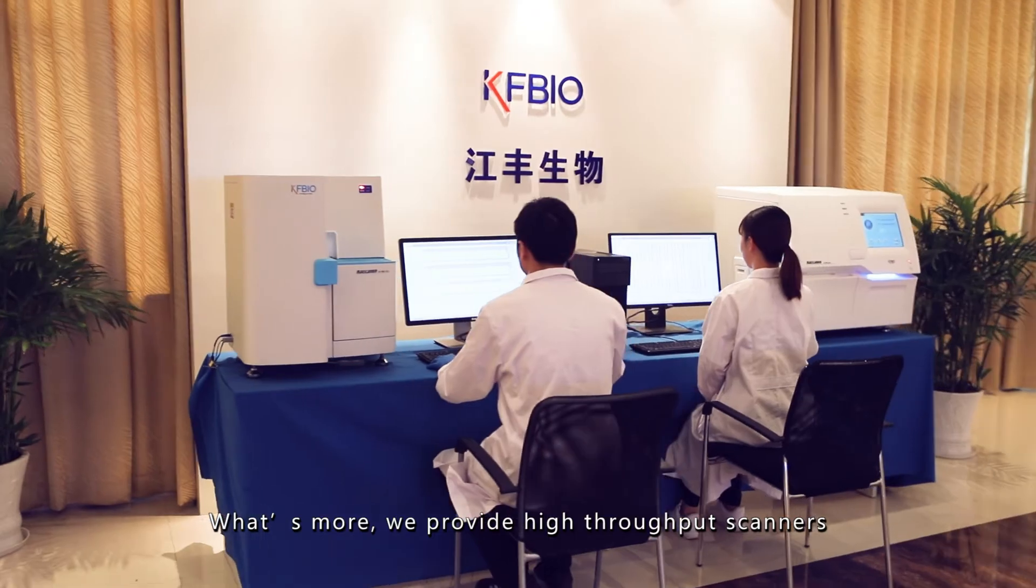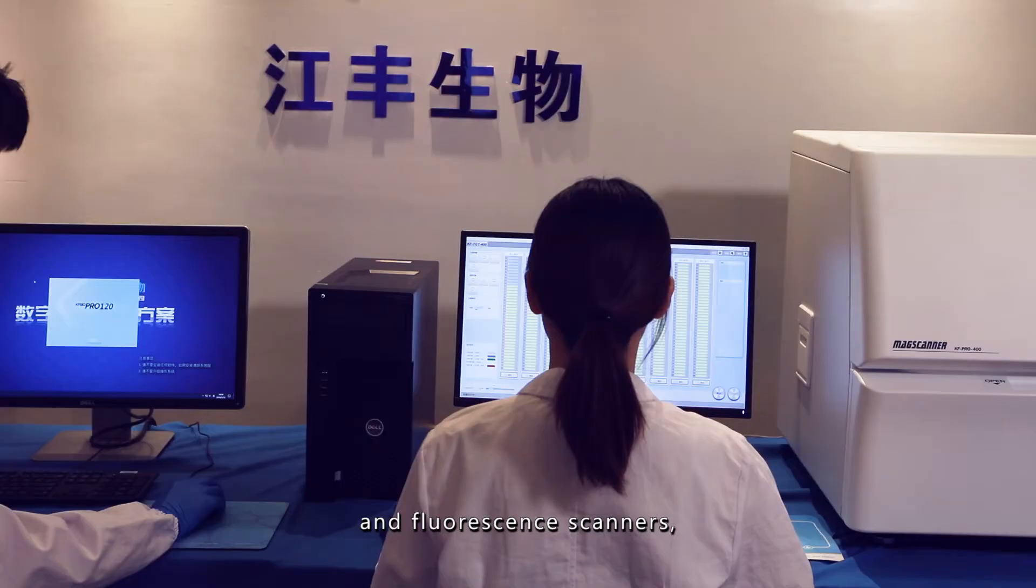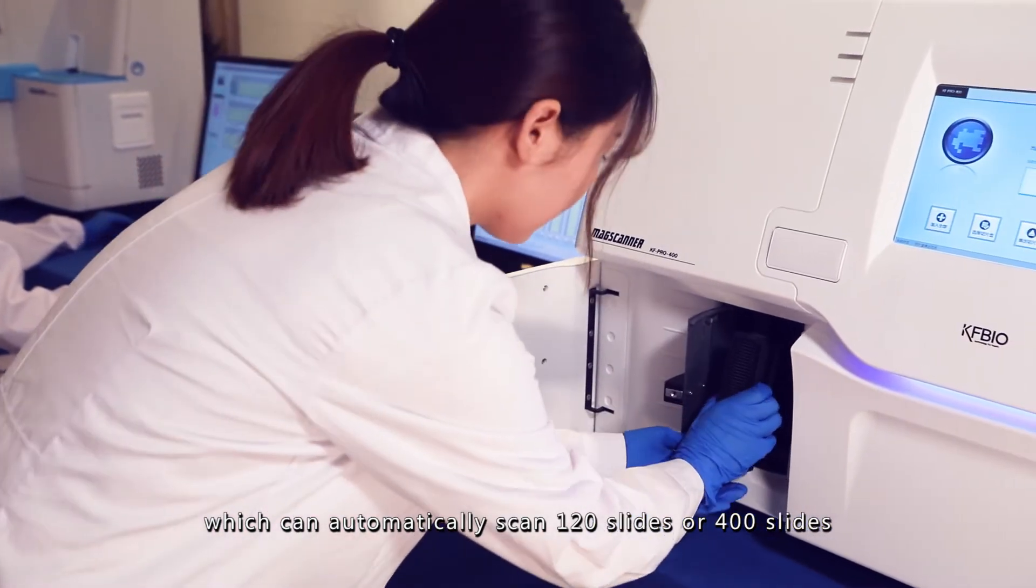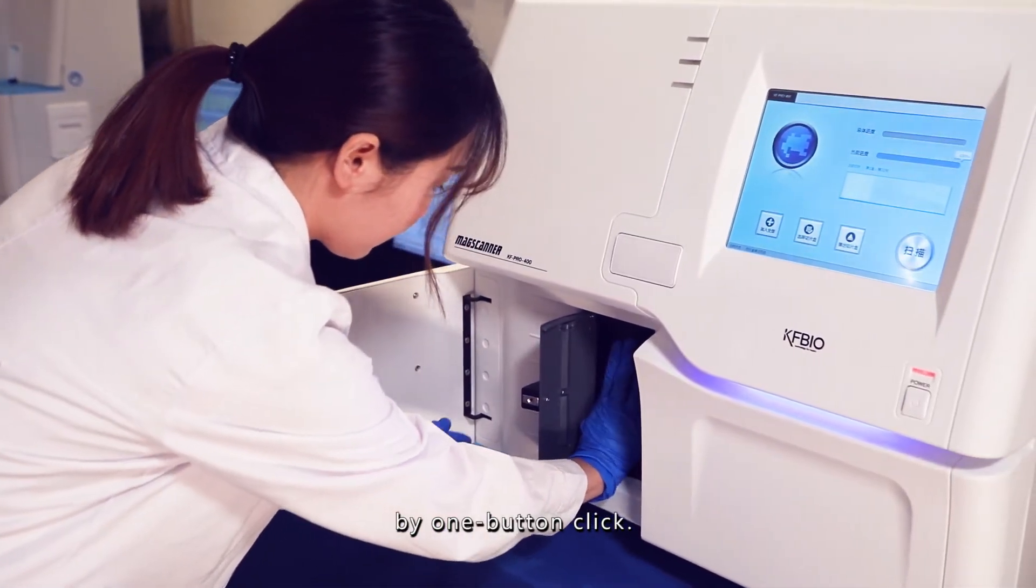We provide high-throughput scanners and fluorescence scanners, which can automatically scan 120 slides or 400 slides by one button click.